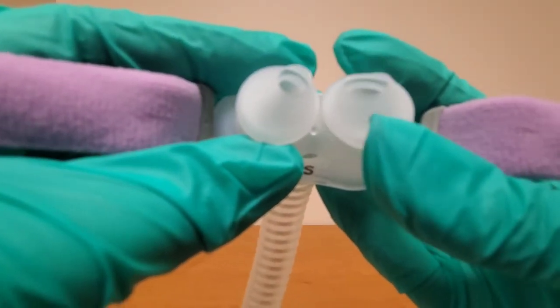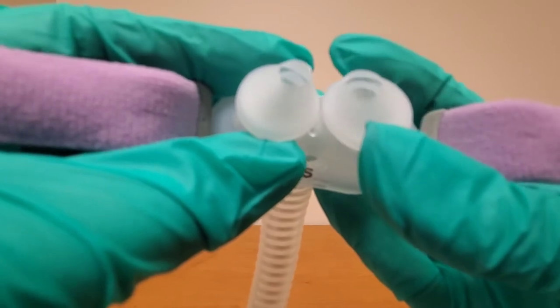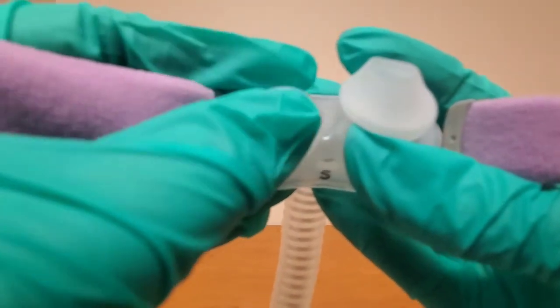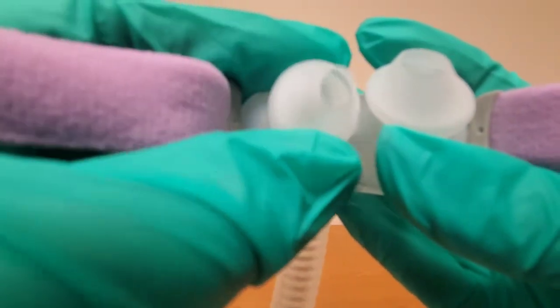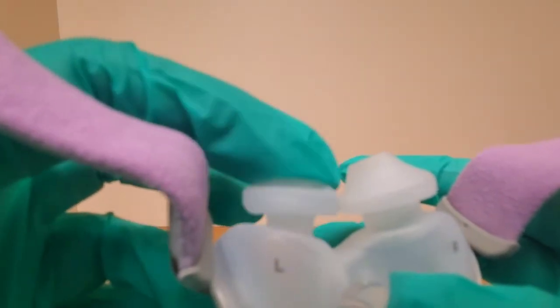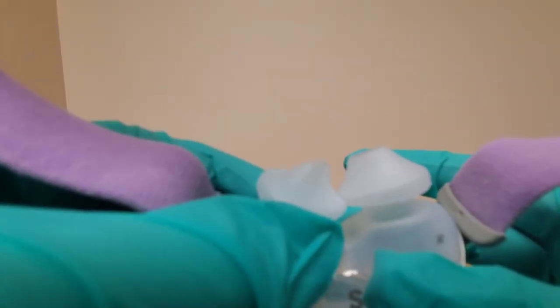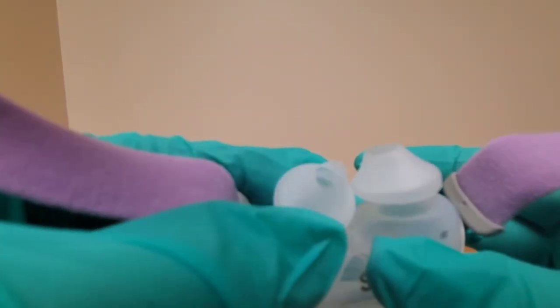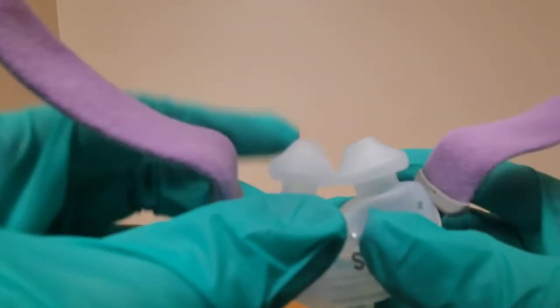Inside the nasal pillow you can see this is two layers. That thicker layer holds it in place and the outer thinner layer keeps it nice in your nose. When you wash it you can turn it inside out like that which would make it floppy instead of supported. If that happens just reach under here and pop that little inner layer back up again and now everything will inflate and feel fantastic.